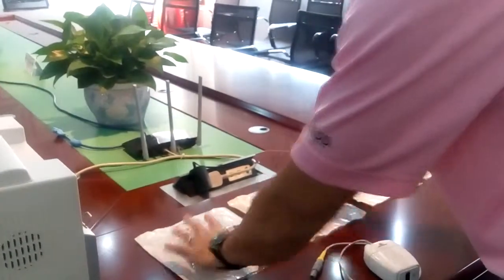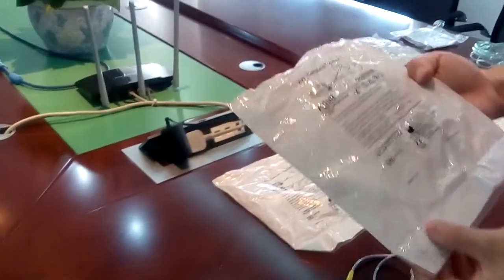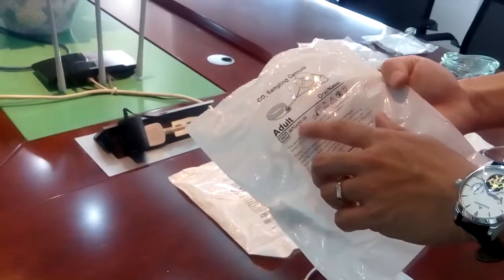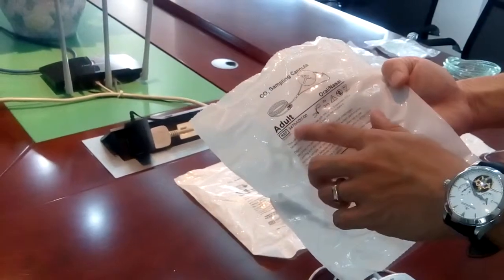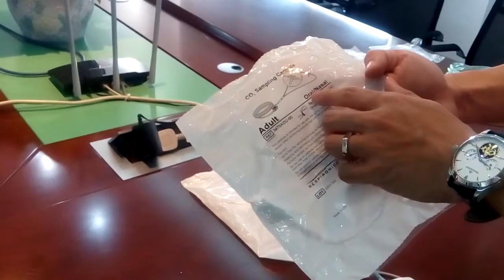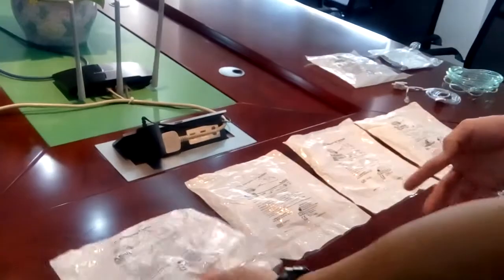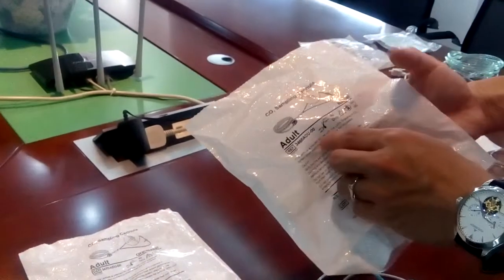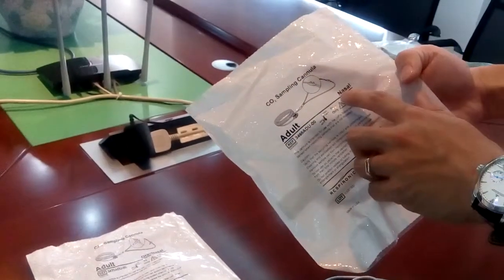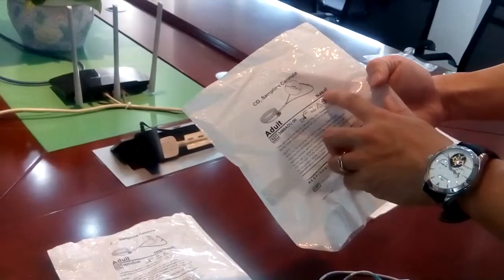Let's check the different nasal cannulas. We have part number 3470 ADU — this is for adult users. It has both an oral-nasal cannula and a nasal cannula. We also have part 3468, which is also for adult but is a nasal cannula only — no oral port.